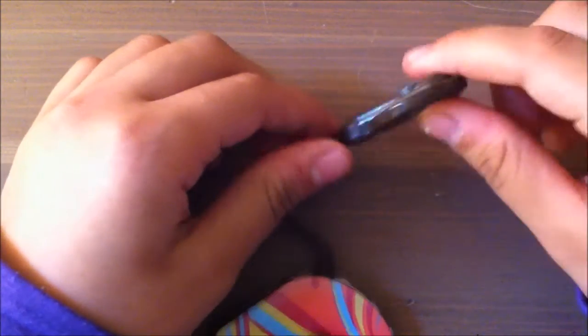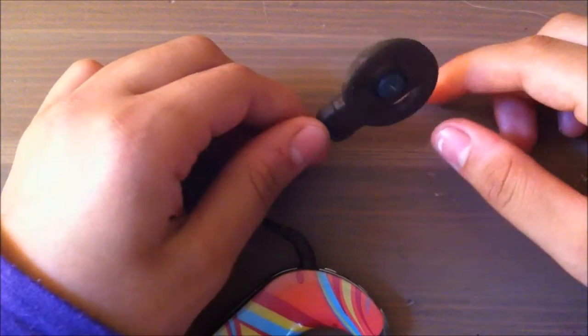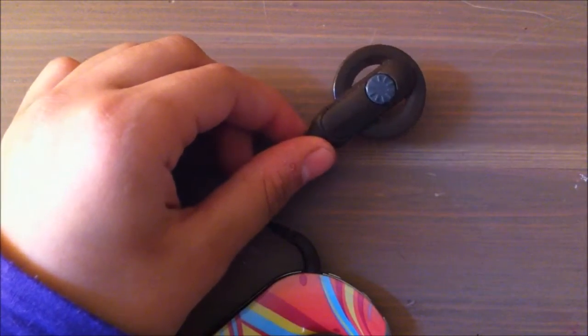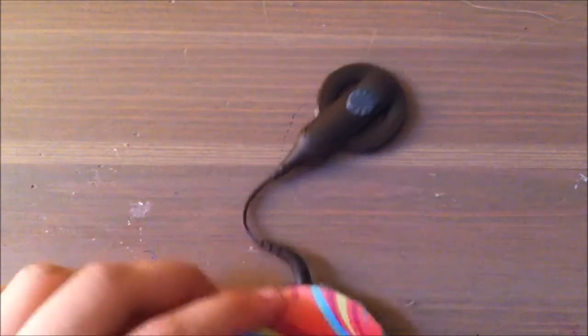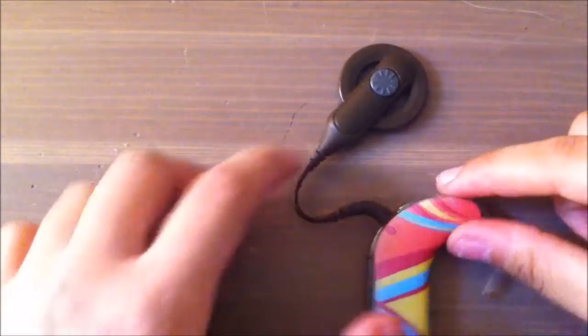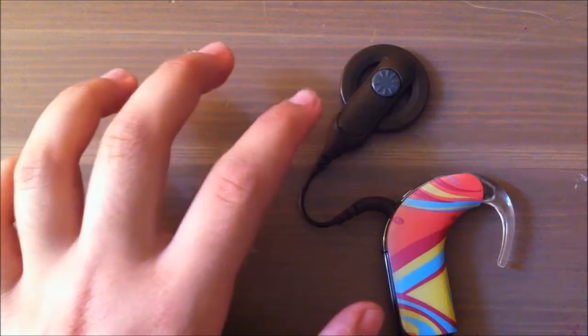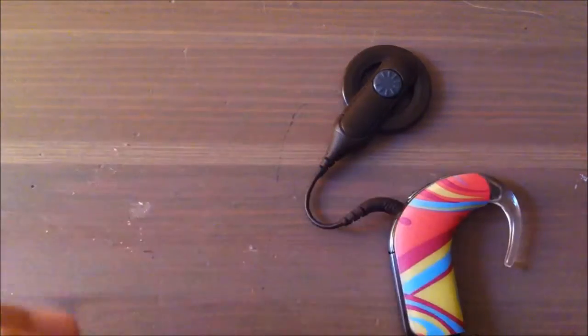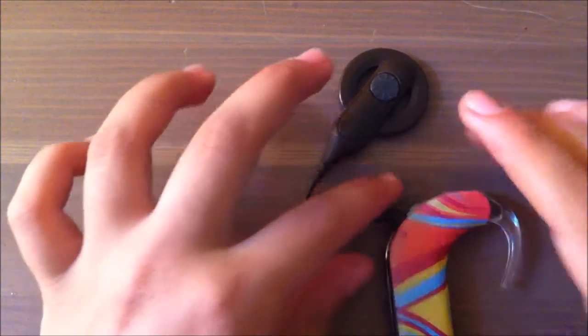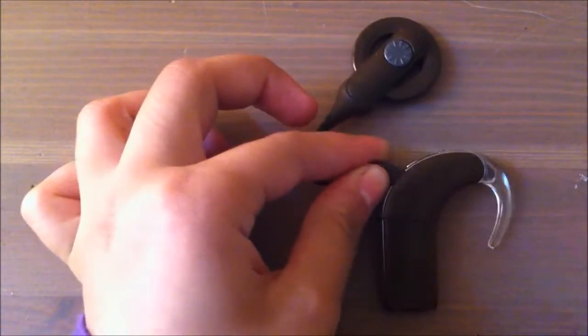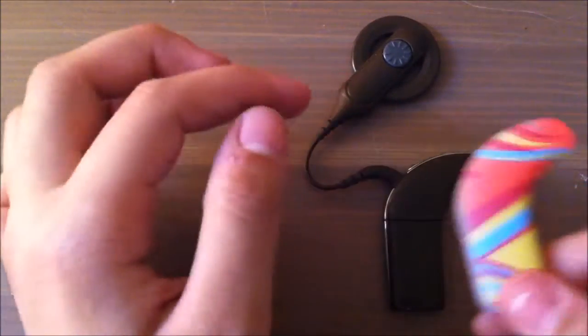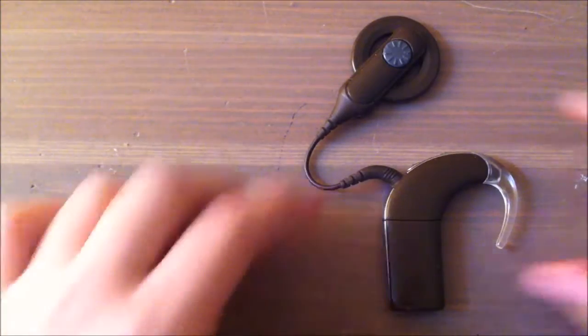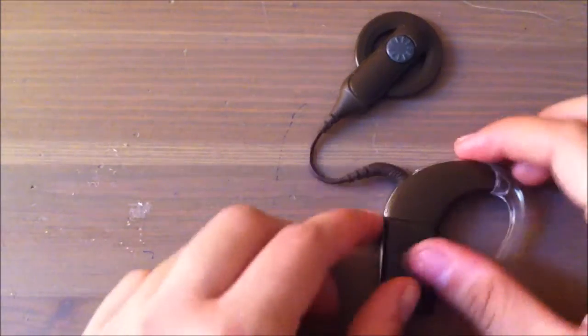This over here is the cable, which connects the coil to the processing unit. Let me just take the cover off. There are different styles of covers.